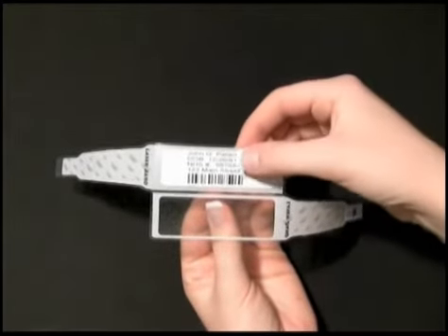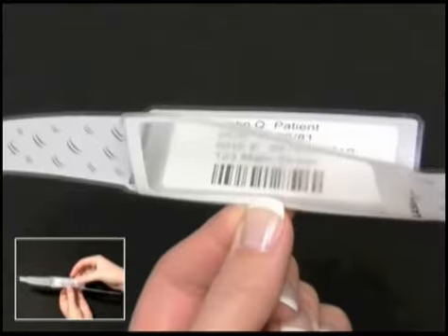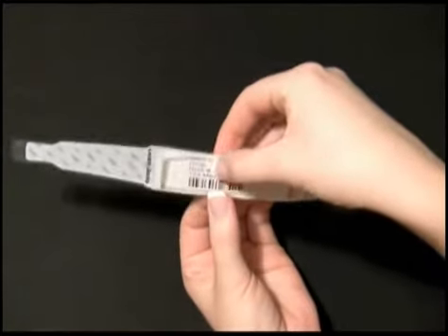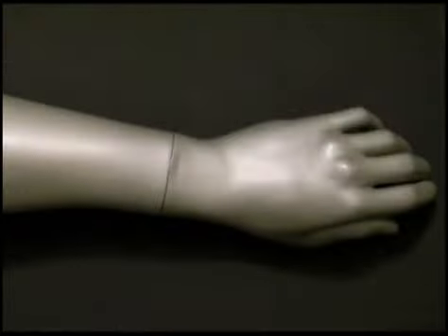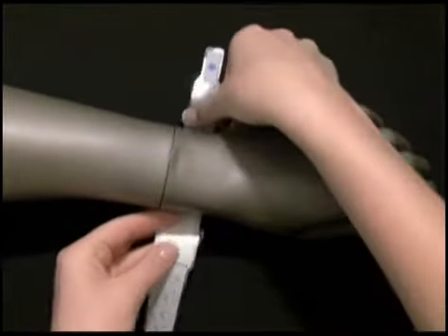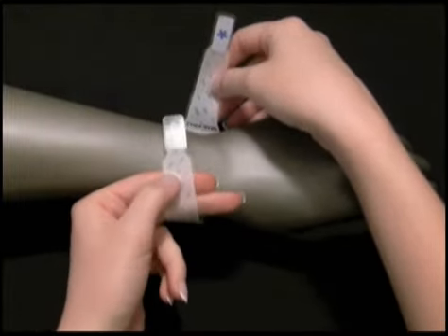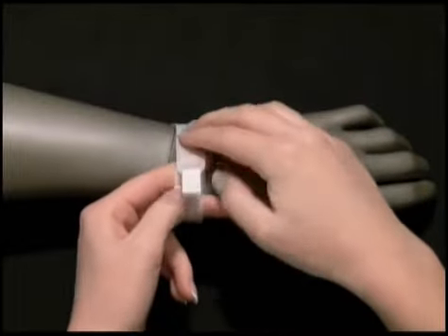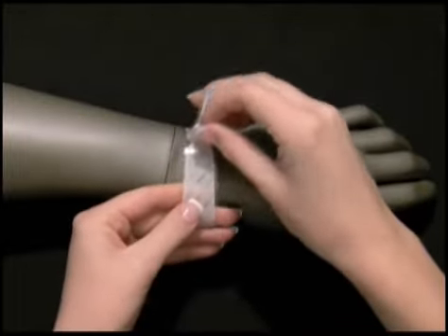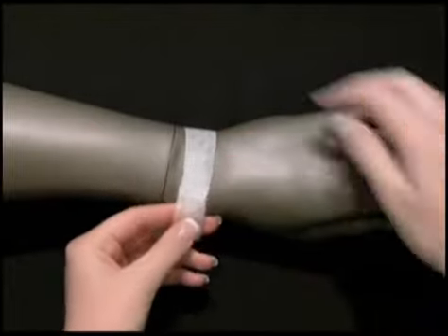Next, create a V by pinching the perforation between the image area and laminate window. Smooth across to create the water, alcohol, and solvent-resistant seal. Fit the wristband to your patient, leaving approximately two-finger space between the band and the patient's wrist, and lay the wristband over the exposed adhesive tab. Lay the second adhesive tab down, removing its cover as you affix the band to itself.